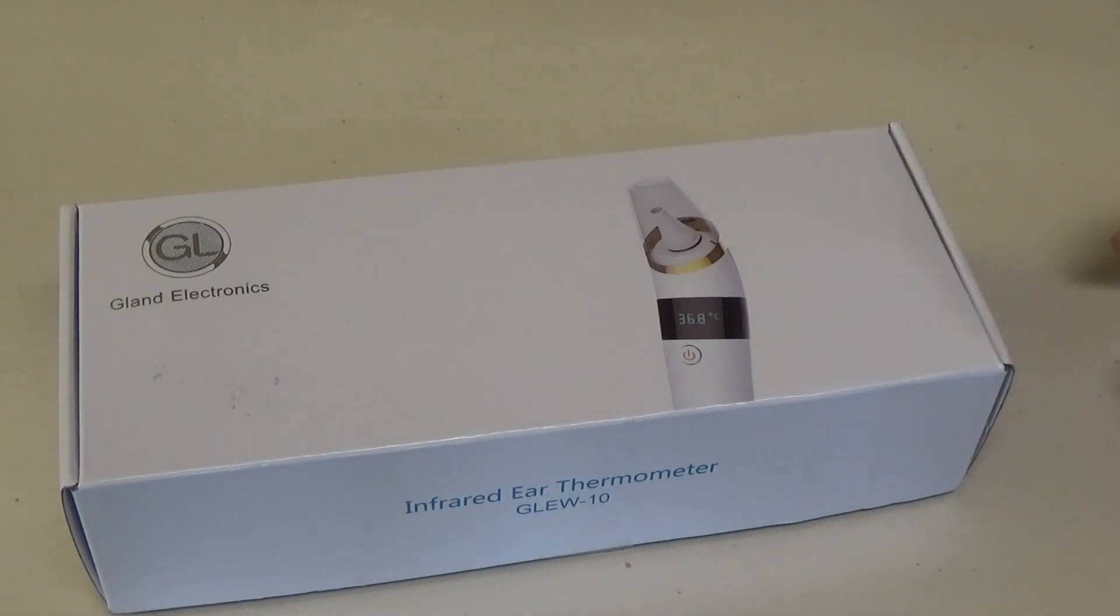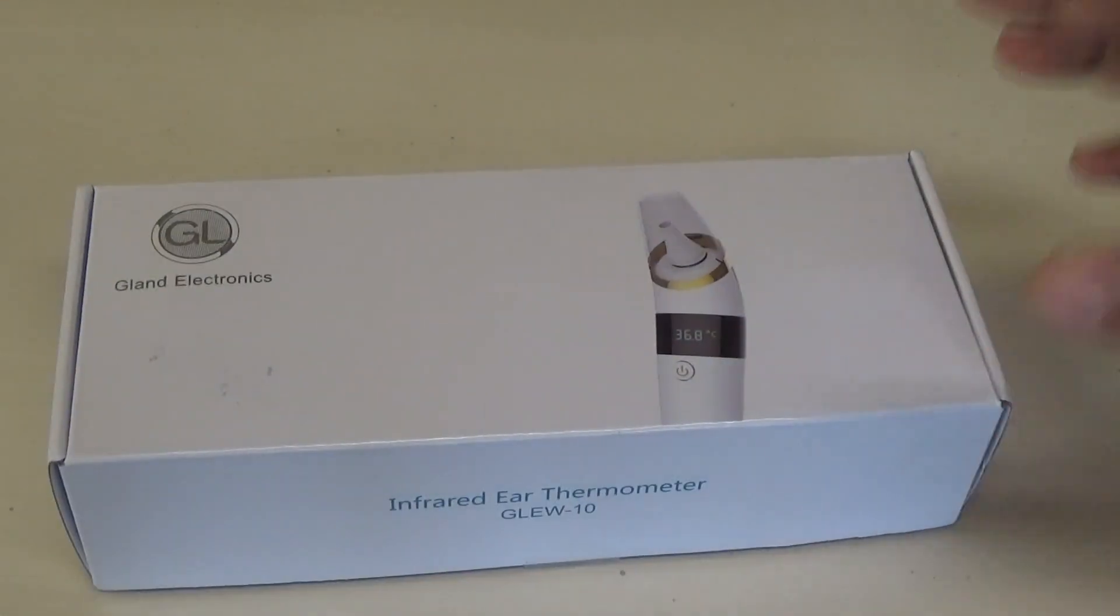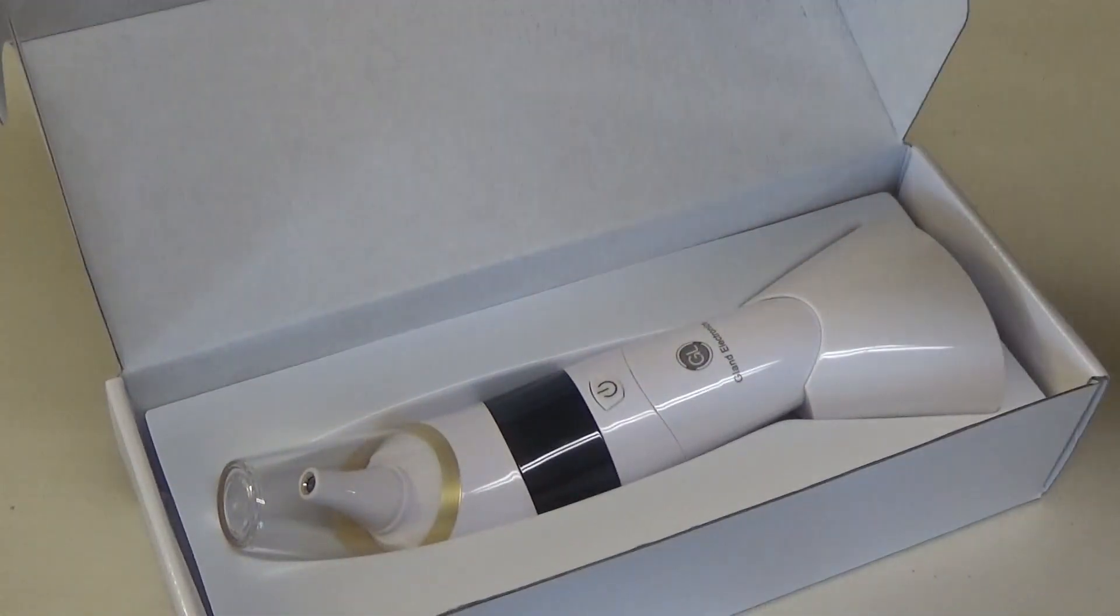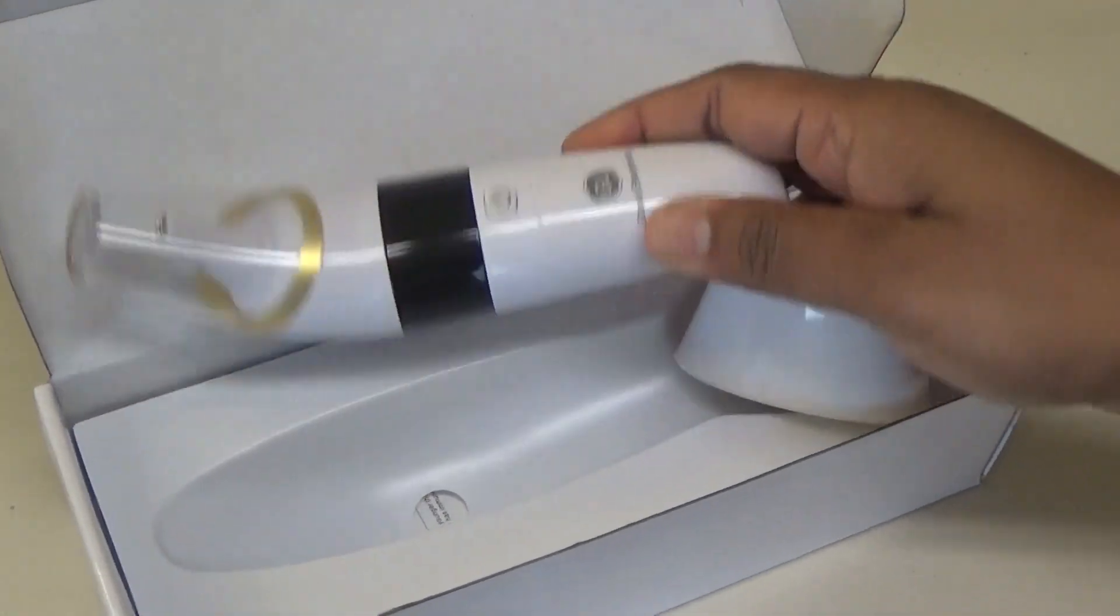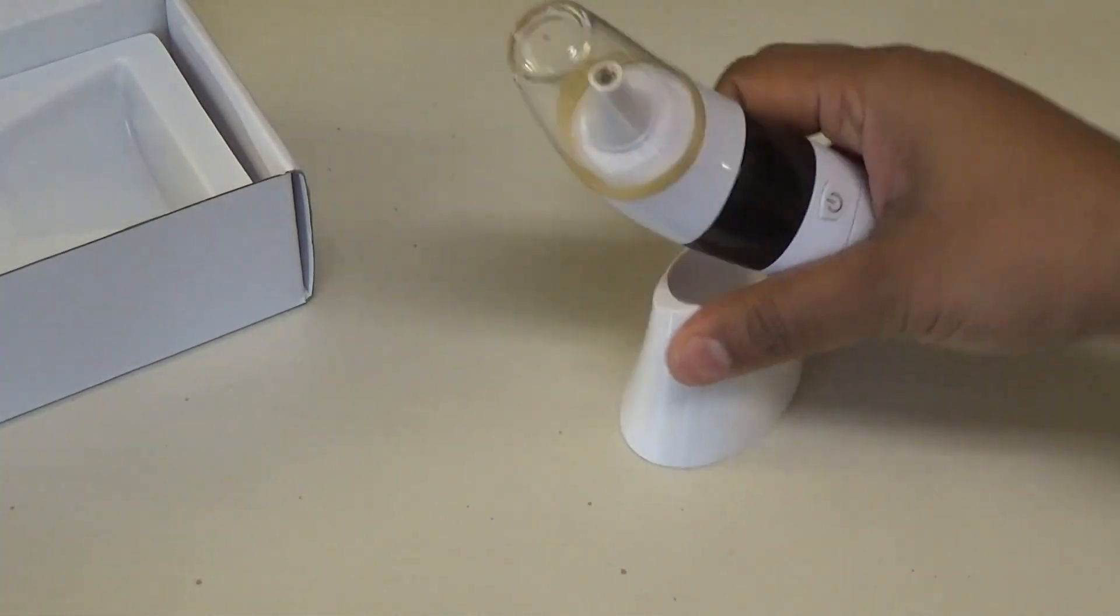Hello and welcome. Today I want to share with you this infrared ear thermometer from the guys over at Gland Electronics. Ear thermometers are mostly used in doctors' offices and I really like the accuracy of an ear thermometer.